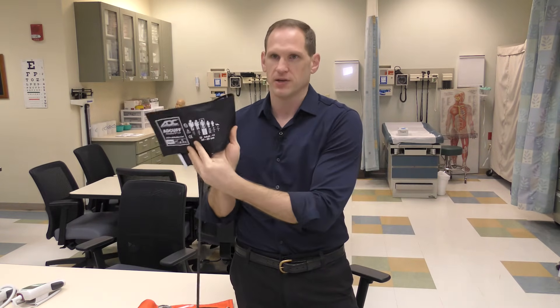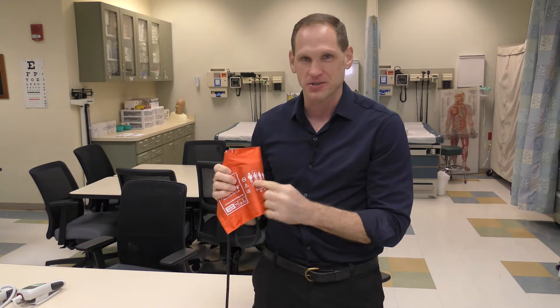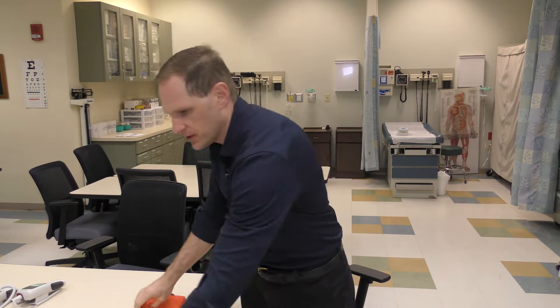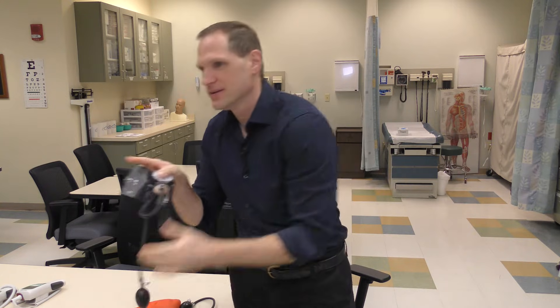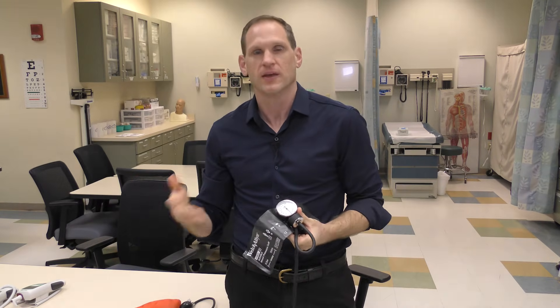On here you've got a little guide. We've got a medium adult, a large adult, and there's even a larger one for use on legs. We also have child ones and even baby ones. The most important thing: if you use a cuff that's too big your blood pressure reading is going to be low, and if you use a cuff that's too small it's going to be high.